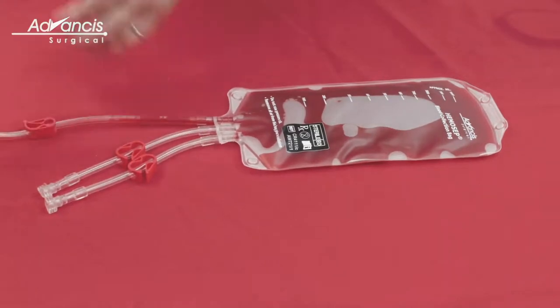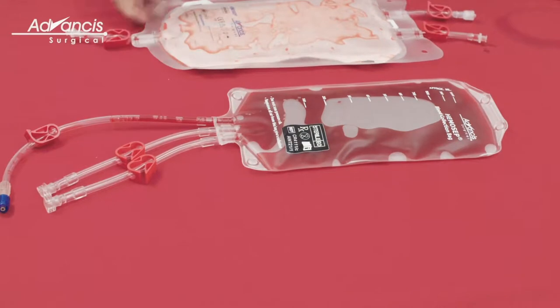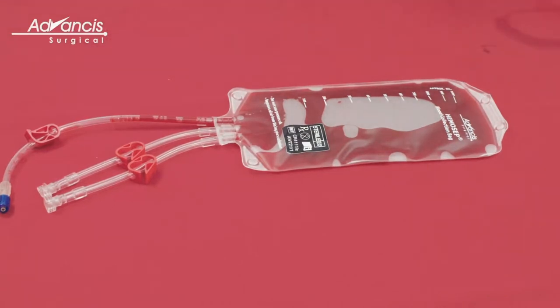Close the clamps and dispose of the used cell concentrator bag in clinical waste. Transfuse the blood to the patient with a standard blood giving set.